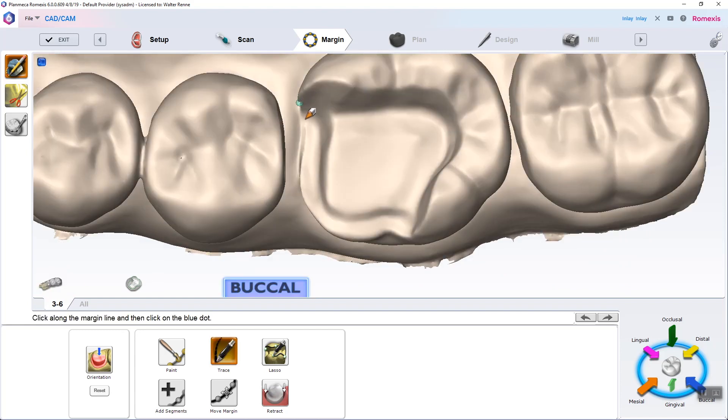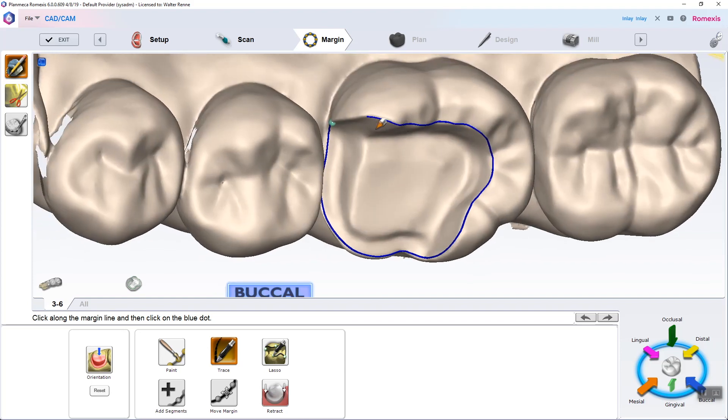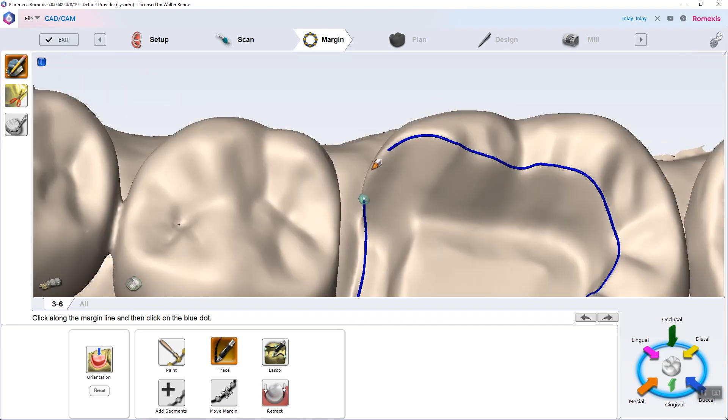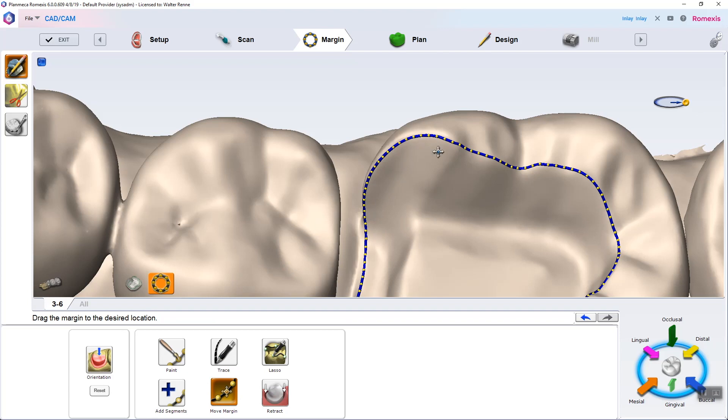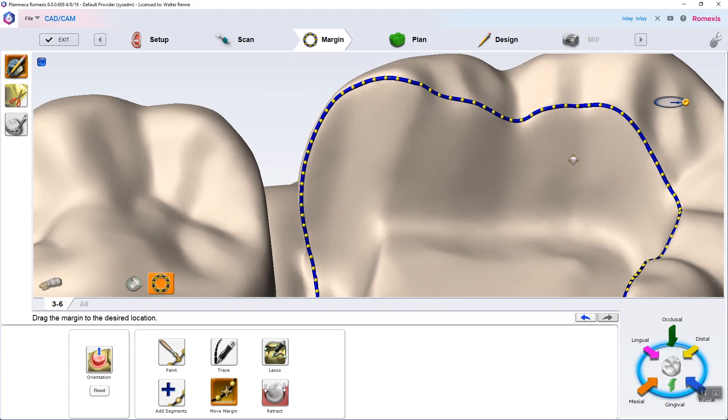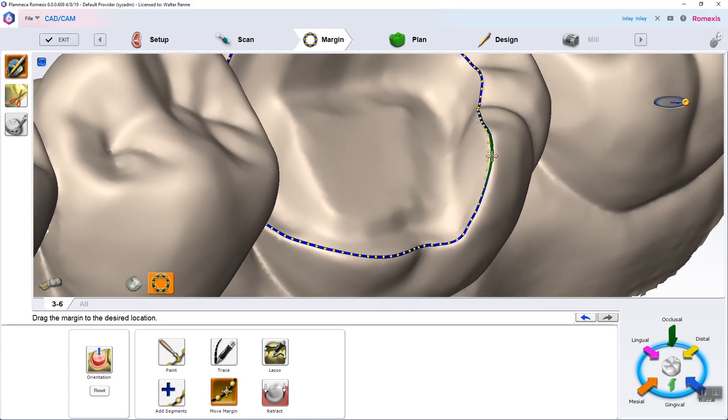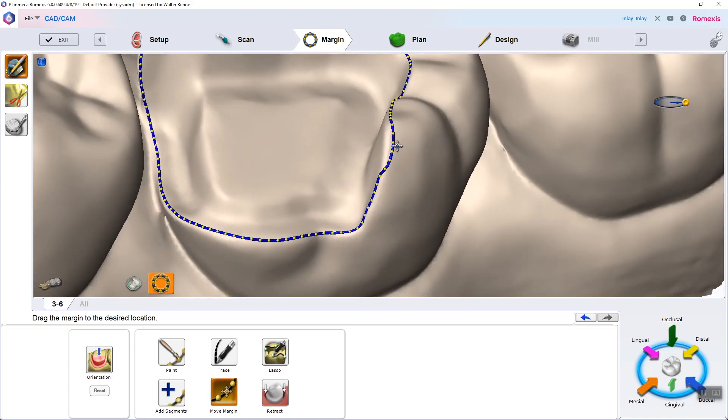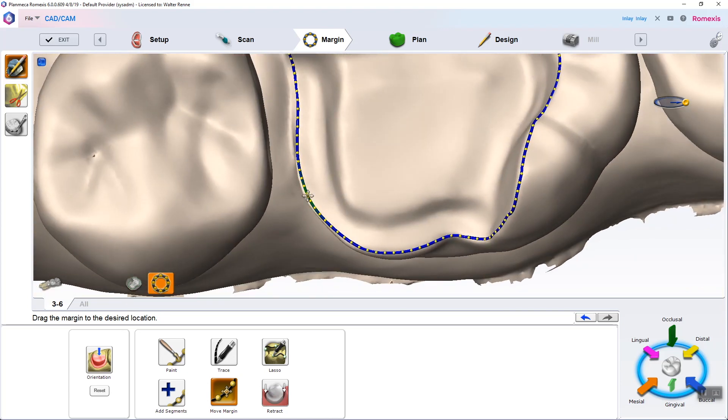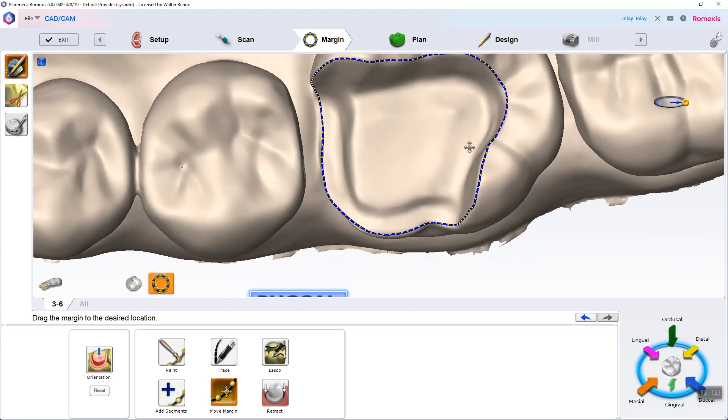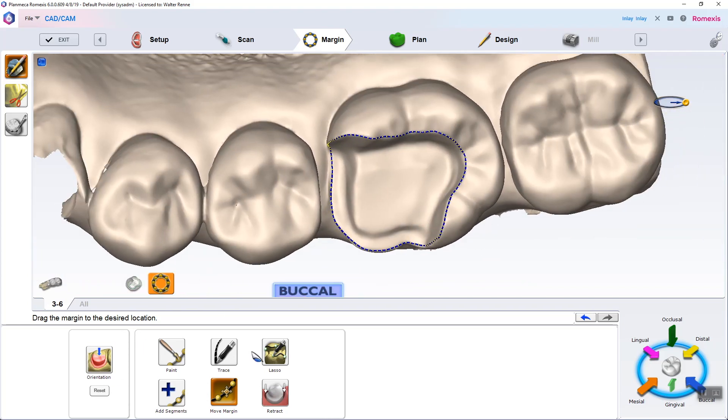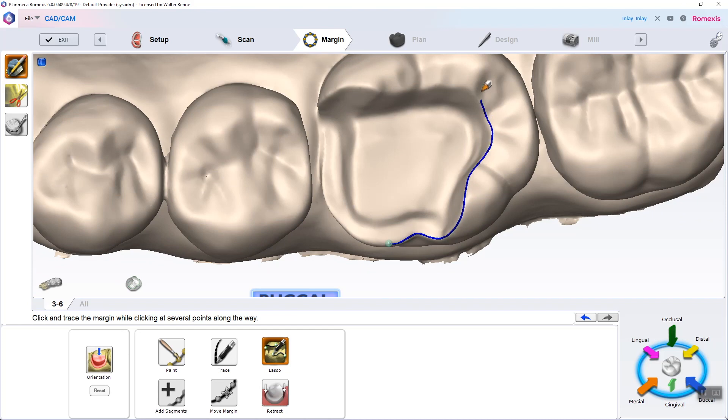Now we're using trace. Trace is the one that is completely manual. It has no automatic feature whatsoever, so basically wherever you're clicking, the margin is going. And then you could go to the move margin and drag the rope. There is that bubble on the top right-hand corner of the screen, which essentially lets you define how much of that rope you want to drag. Okay, with inlays and onlays, you want to be very careful not to drag the rope over onto the occlusal surface, which would prevent seating of the restoration.